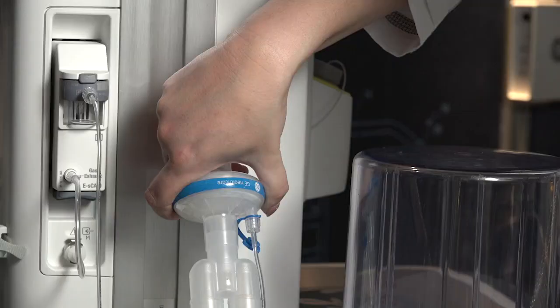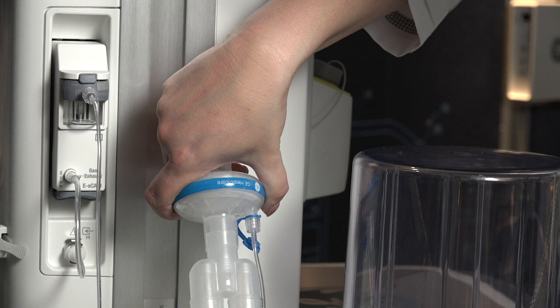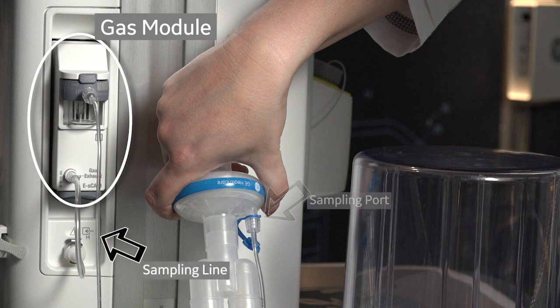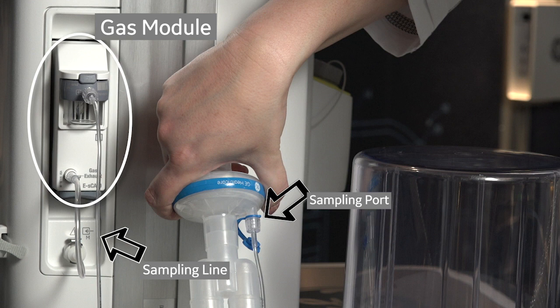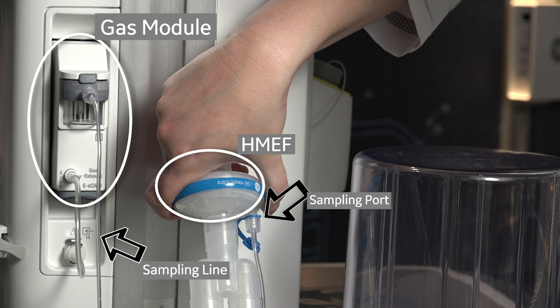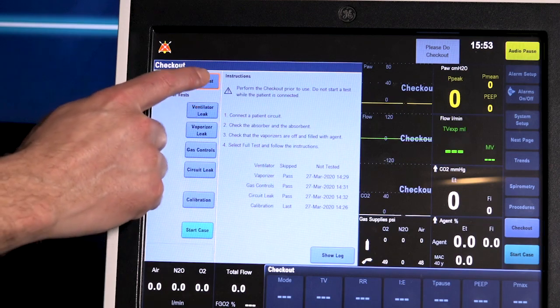Prior to the checkout, all accessories that will be used during the case should be attached to the circuit to ensure accurate circuit compliance. When using a GE Healthcare respiratory gas module, make sure to connect the sampling line to the sampling port proximal to the anesthesia device with respect to the heat moisture exchange filter or HMEF. Follow the on-screen instructions and select full test.